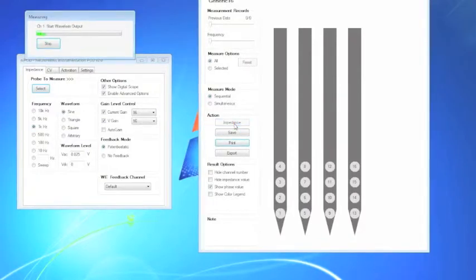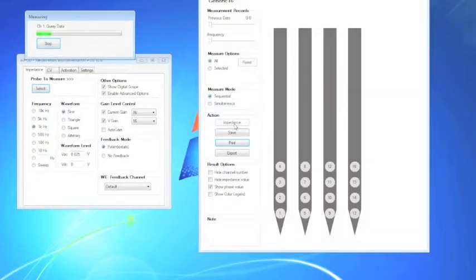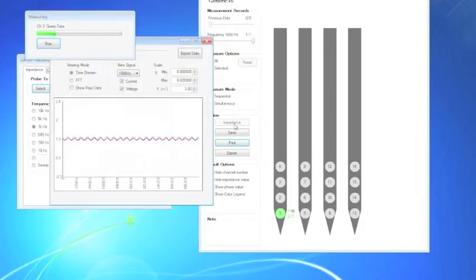Press the impedance button to run the scan. As it runs, impedances and phases will be shown on the screen next to the site. The digital O-scope will show the relevant waveforms. Note that your measurements may look different. During the measurement, keep an eye on the waveforms. As long as they show distinguishable sine waves, you need not worry about this window.